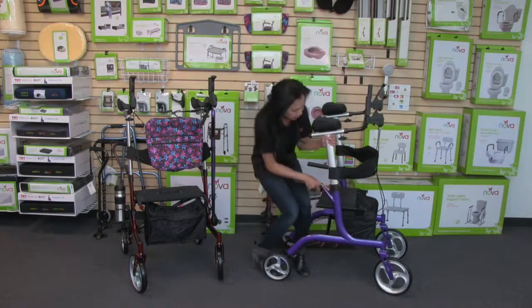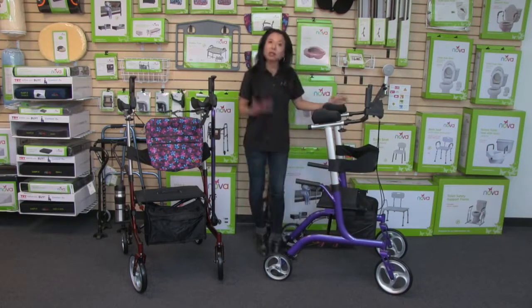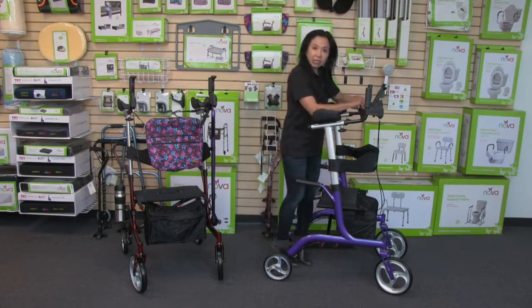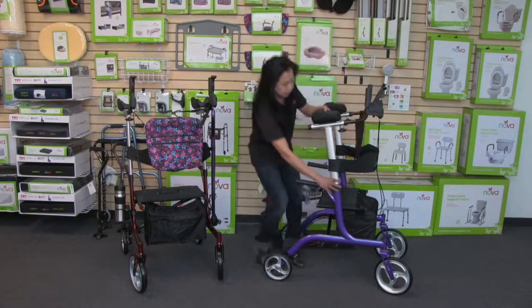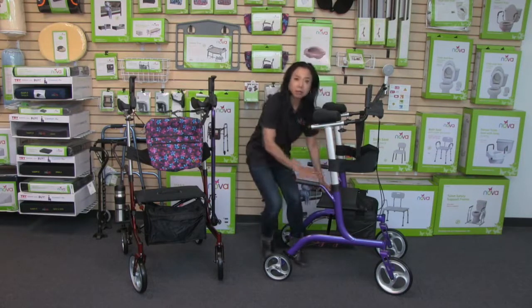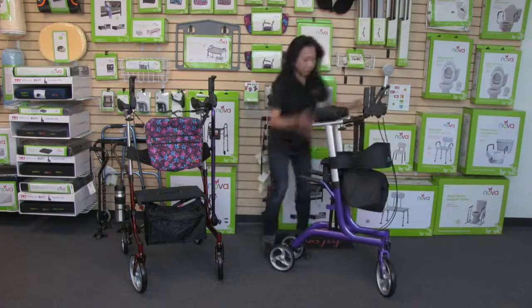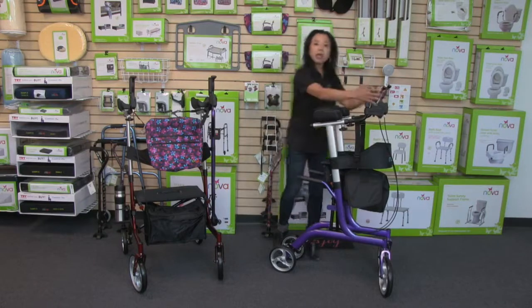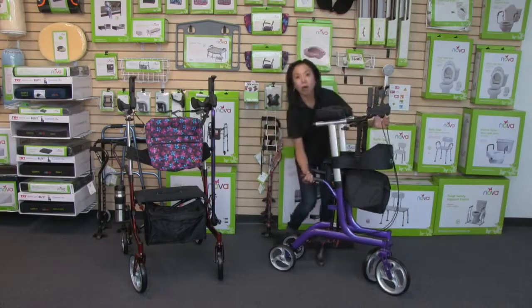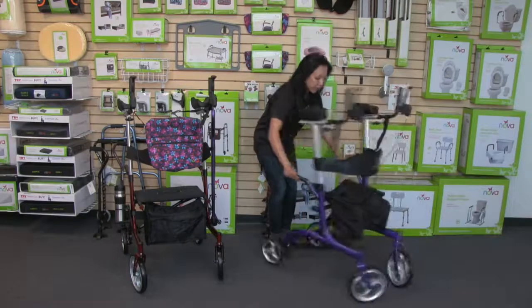The Phoenix is also very easy to fold. All you have to do is release the stabilization strap, then lower to the lowest adjustment with that quick, easy adjustment. The seat has a built-in seat handle, so you simply pull up on the seat and it stands in a folded position. You can roll it in this folded position, or pick it up and carry it — it only weighs 20 pounds.